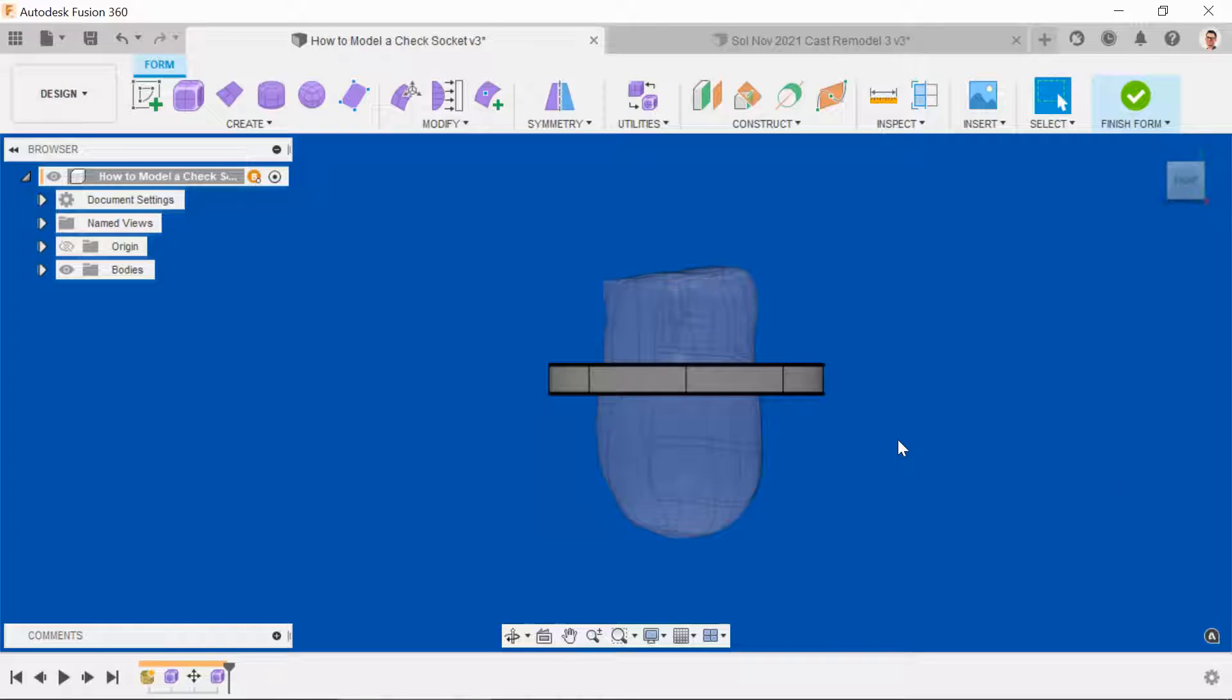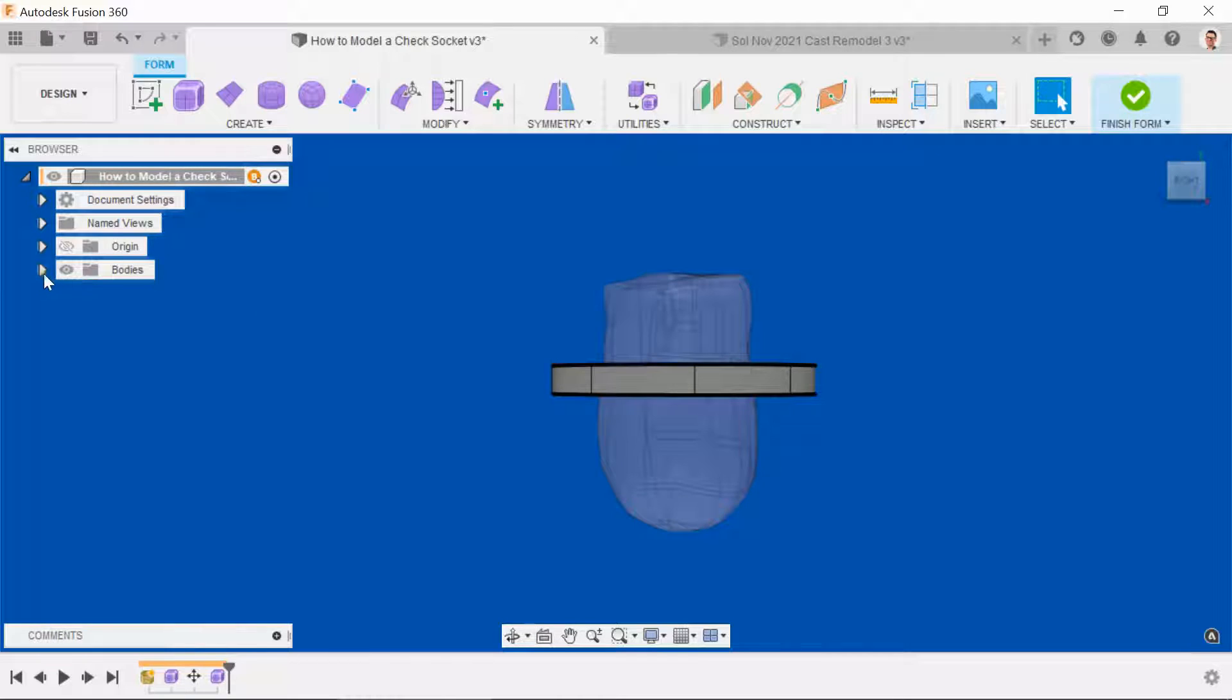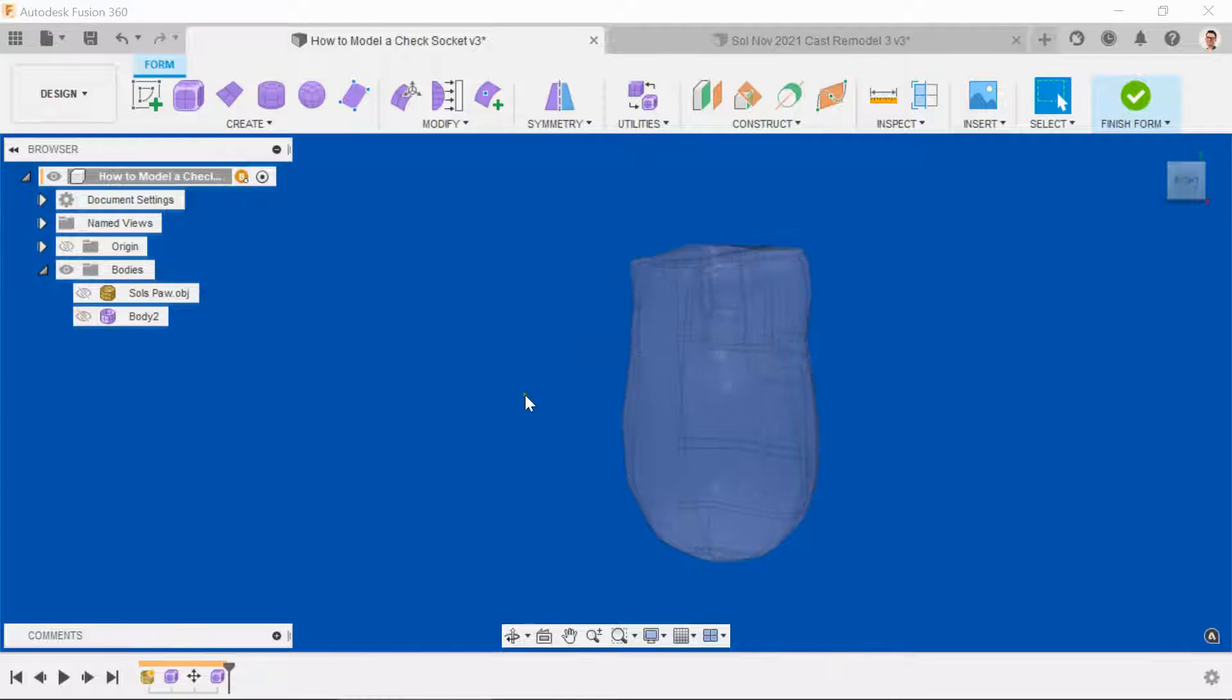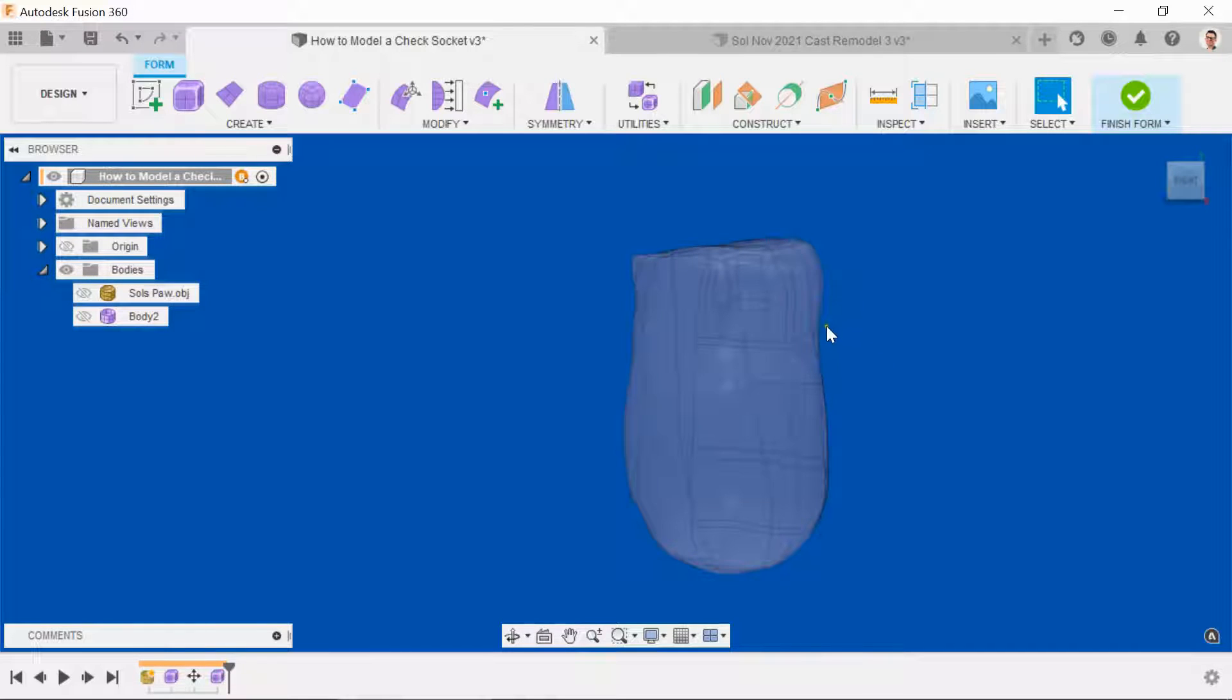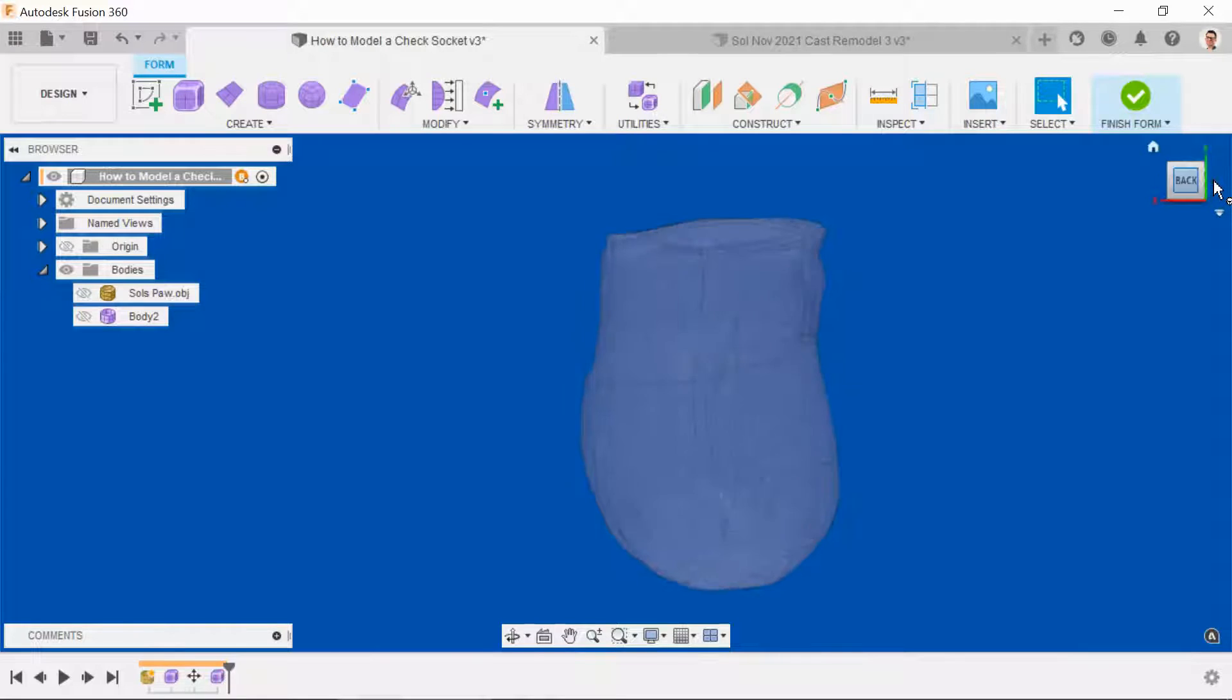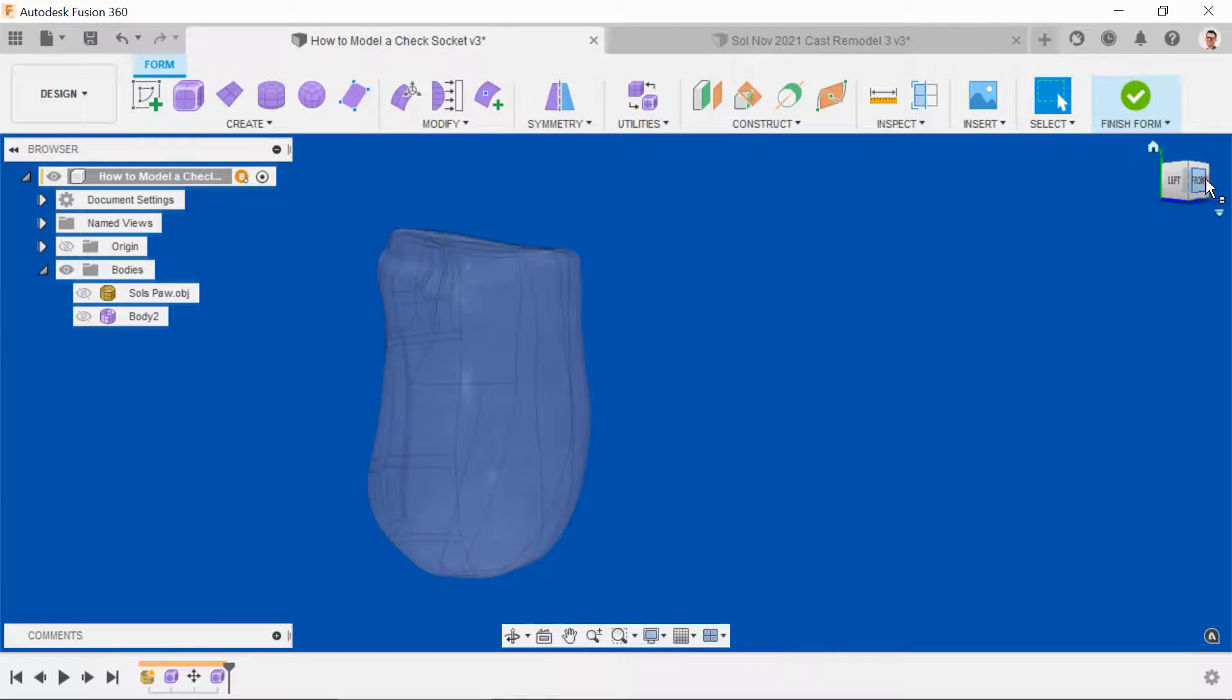We're now going to make the trim line of the top of the socket by manipulating the cylinder into place. Ideally, what we're looking to achieve is to try to follow the curve which runs around the top of the trim line or the neck of the socket. You can see that this curve is defined here and here, and if we turn to the side, you can see it continues on each side all the way around to the front.